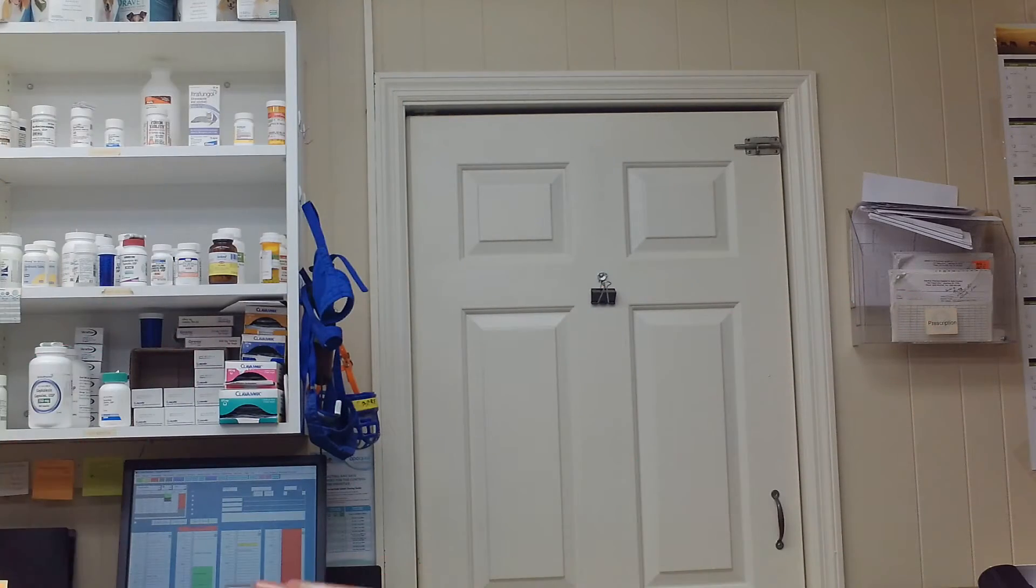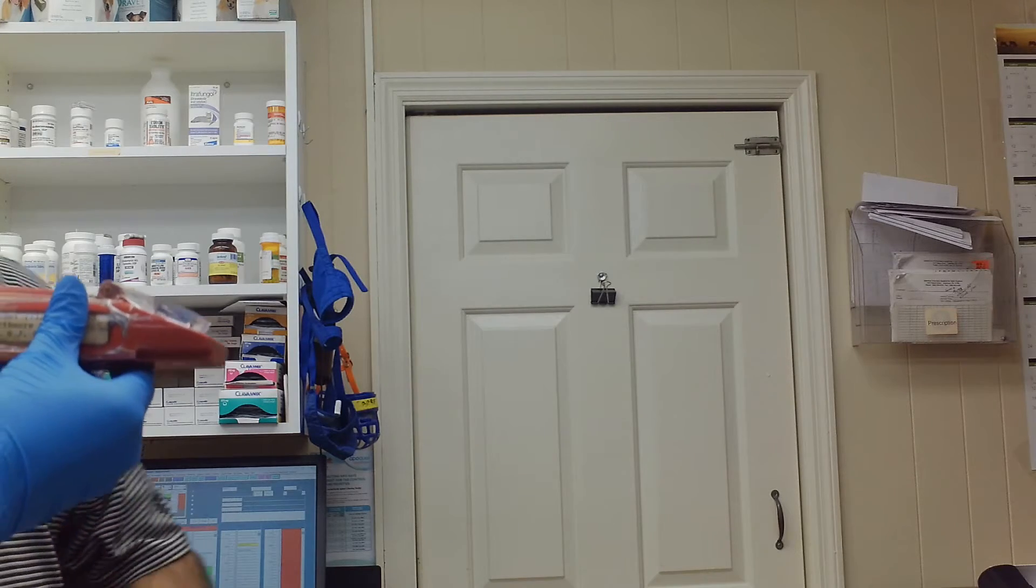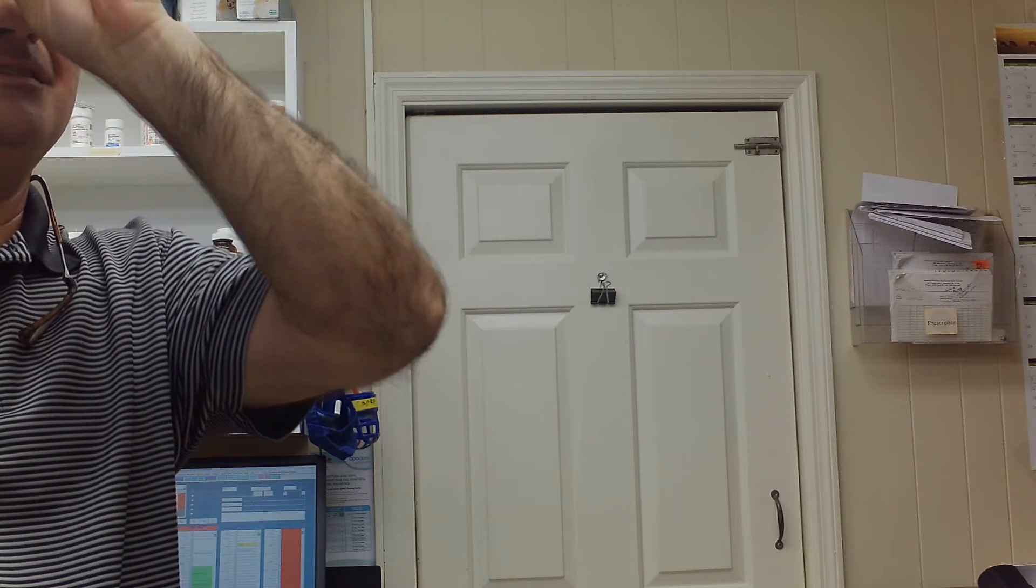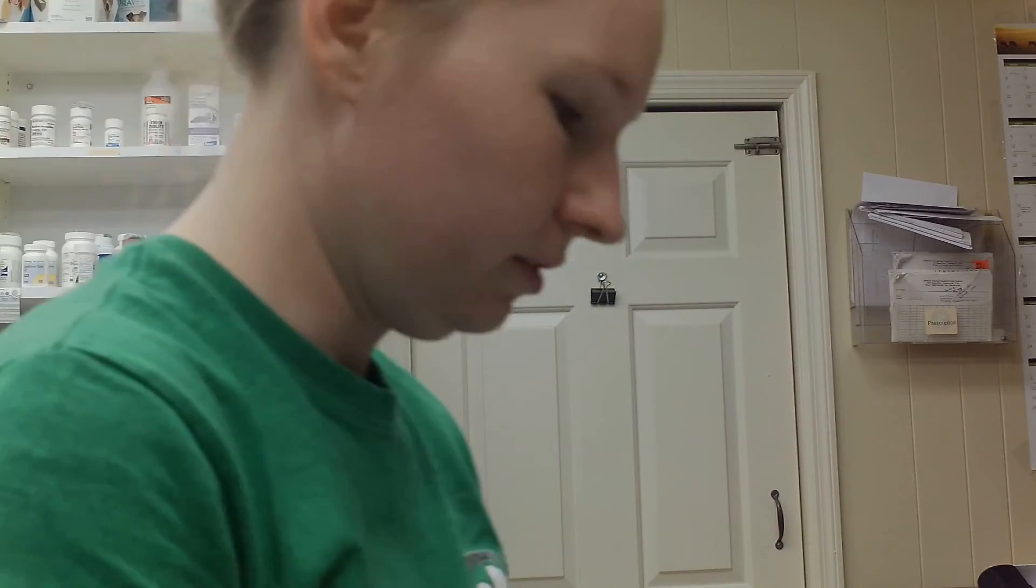I'm going to get my preceptor to double-check for me. Dr. Crawford, I'm reading 11, what do you think? I agree. All right, thank you.